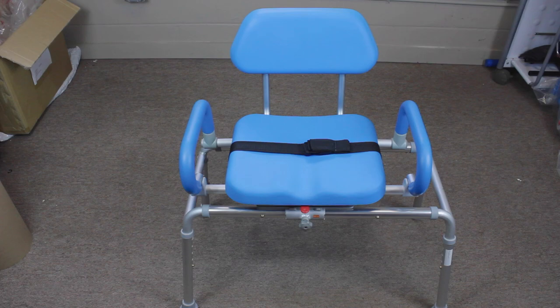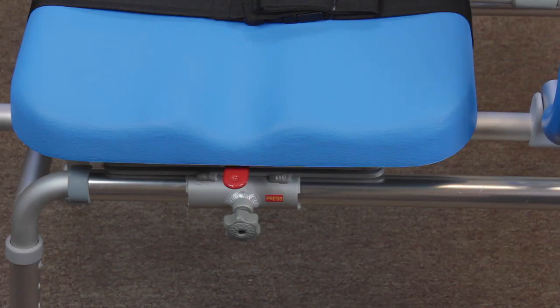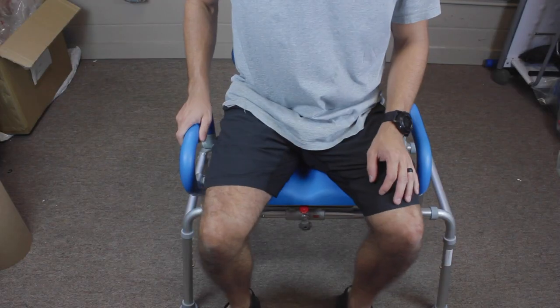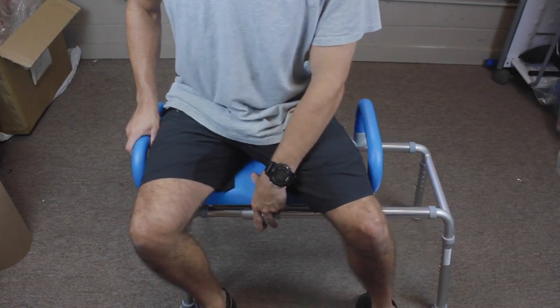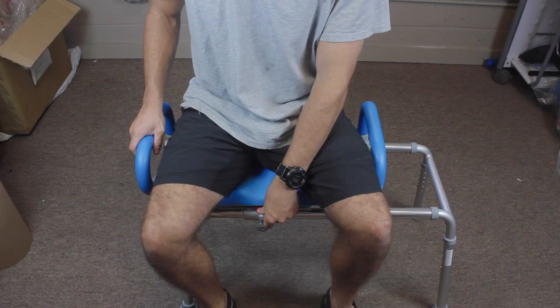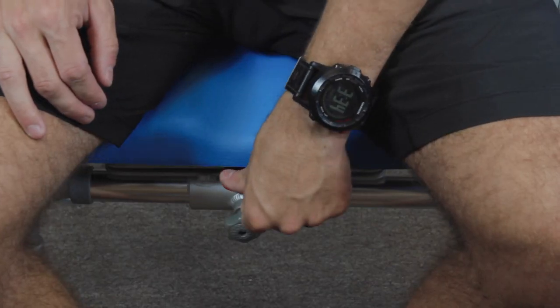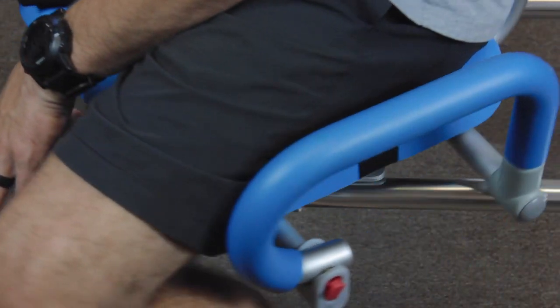Now your chair is fully assembled and ready for you to try out. You'll notice at the front of the chair that there is a red tab and a gray or black button depending on the model chair you have. The button functions as the slide mechanism. The red lever engages the swivel functionality of the chair.